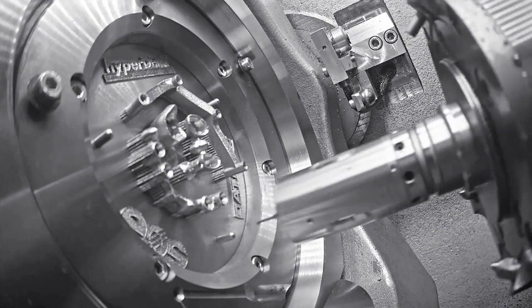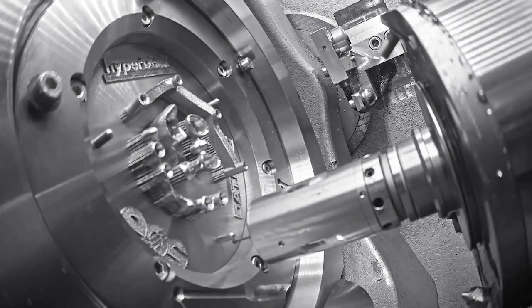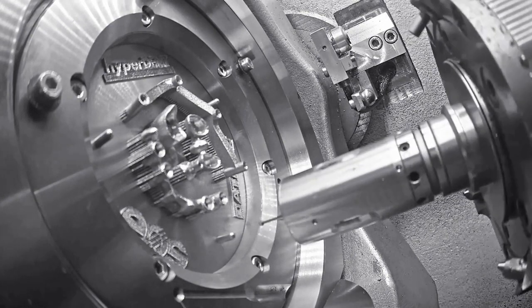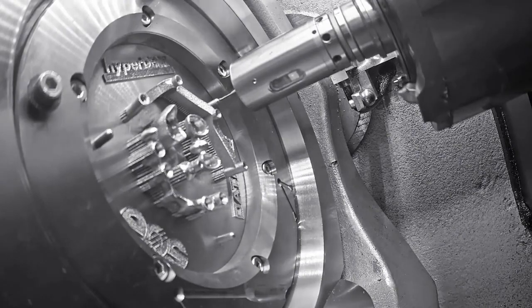Precise measurement of the zero point of the building platform using three measuring pins created during the additive manufacturing process with the help of a tactile 3D infrared touch probe.